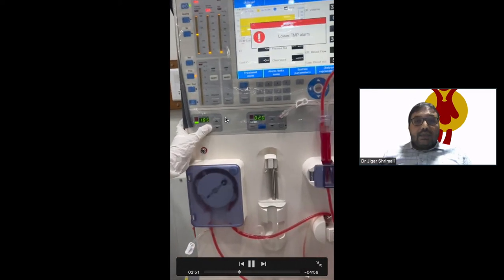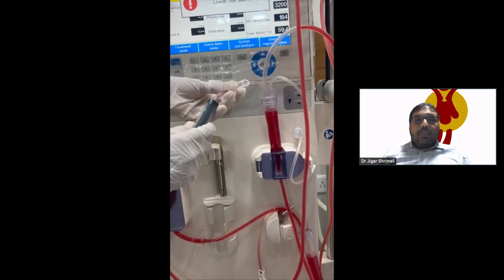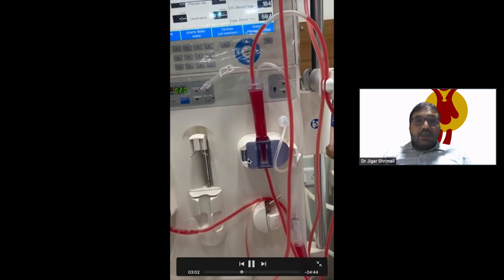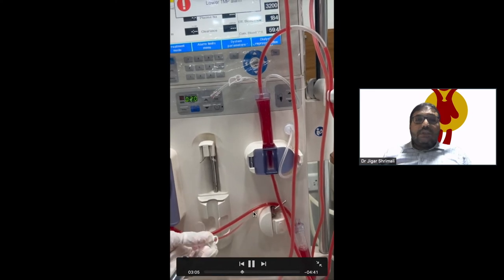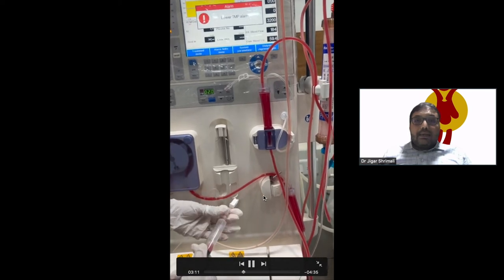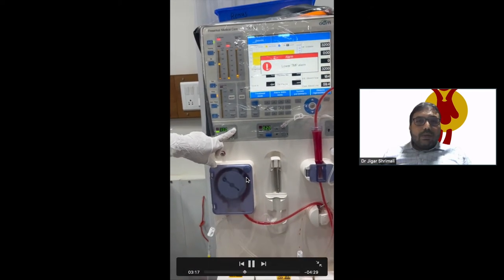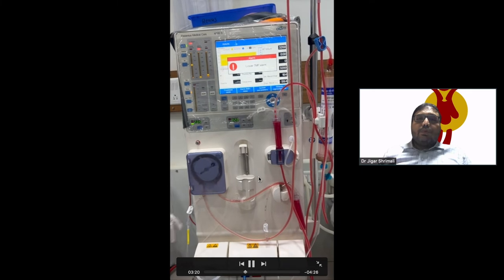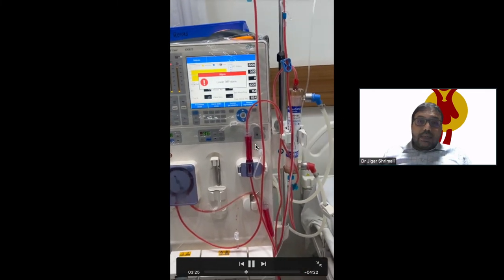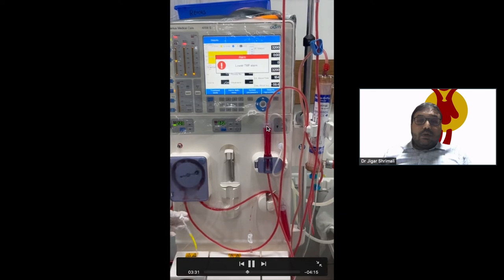As we have put it into prime mode, the circuit will start and the air will begin moving. The venous and arterial chambers will start from the center. The venous chamber will fill from the center. Now, we cannot remove the air from the filter directly — the filter has taken the whole liquid and air inside.